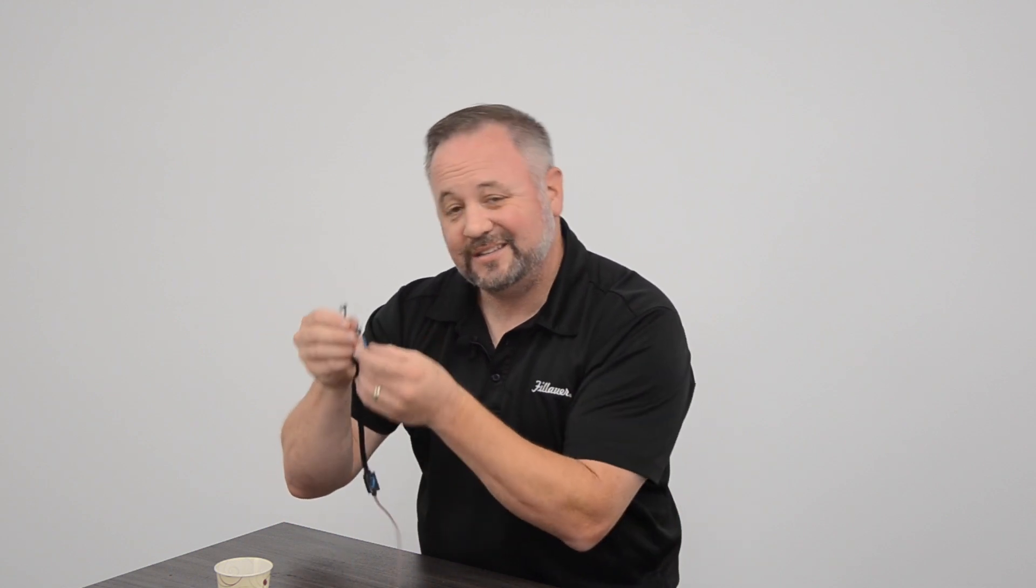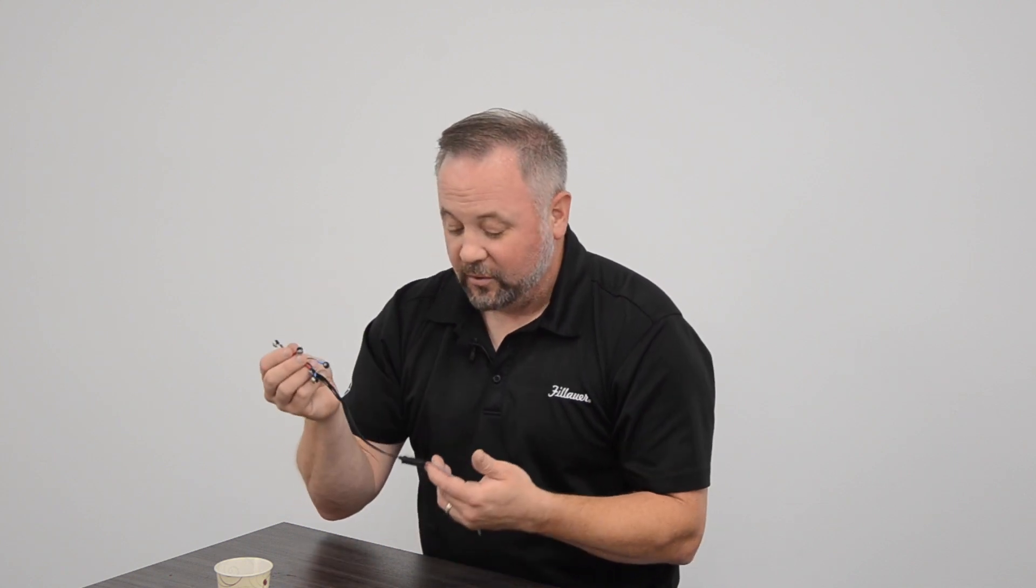When it comes to this one, we've solved a lot of your issues from being waterproof to low profile, great seals, easy to install. All five will take you less than three minutes to put in your socket. I think we've taken care of most of the problems we run into with electrodes today.